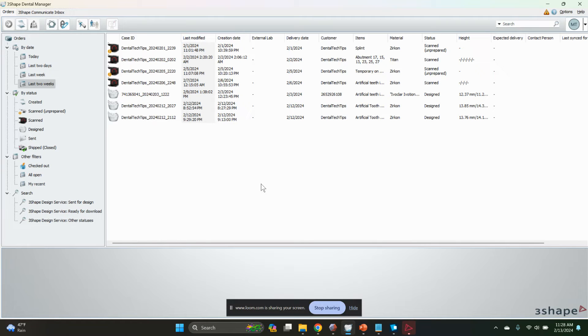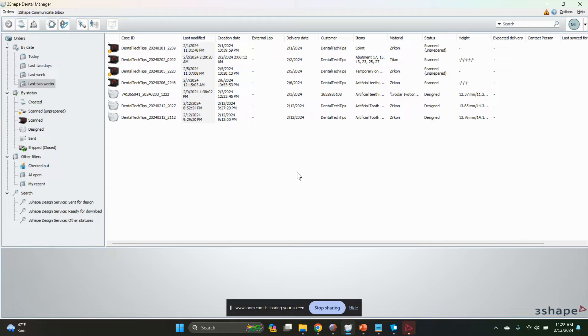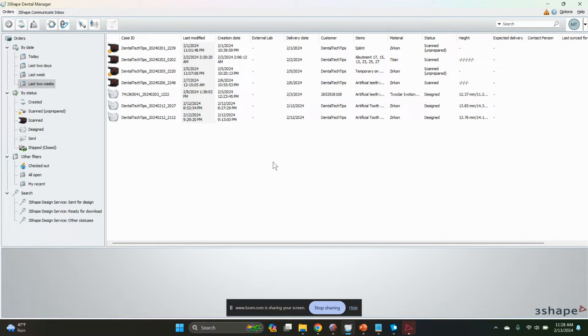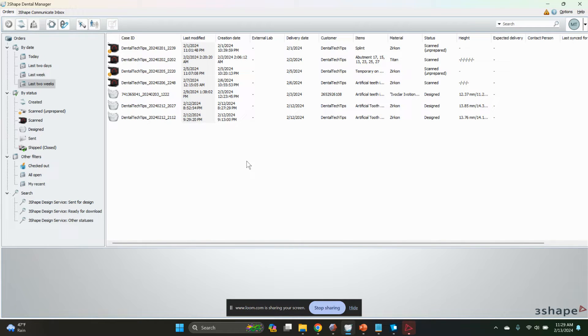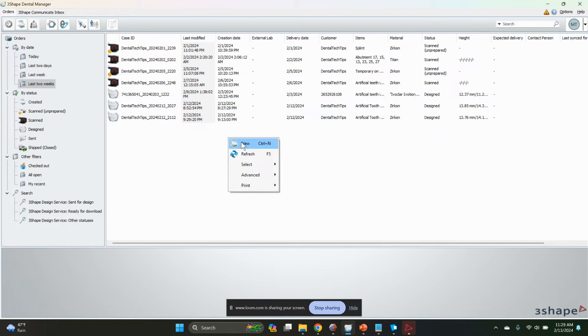Alright, we had a request today from two people to do a block model. This is not something I came up with - I believe it was Angelo in Italy who posted a video a while back, but I've used this trick quite a few times since then. The easy way to do this is just go in here, make a new order.